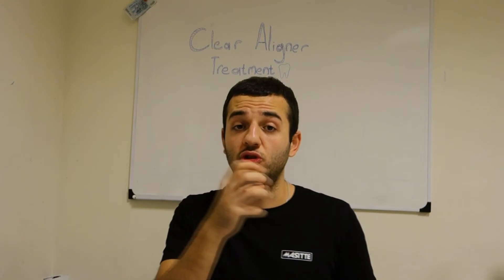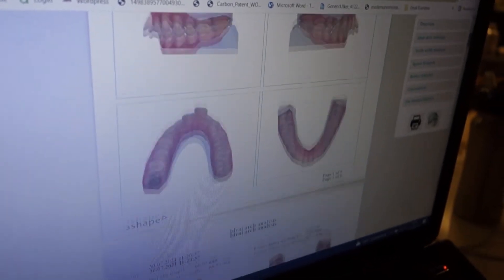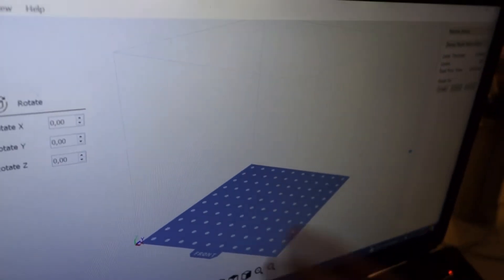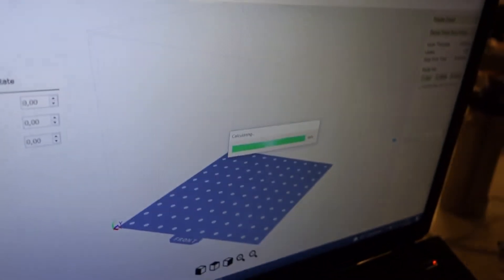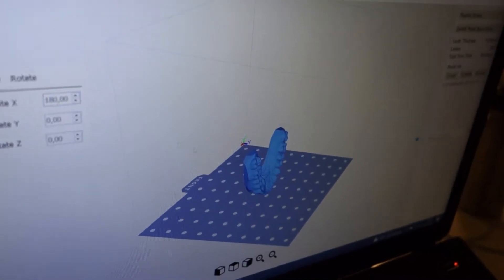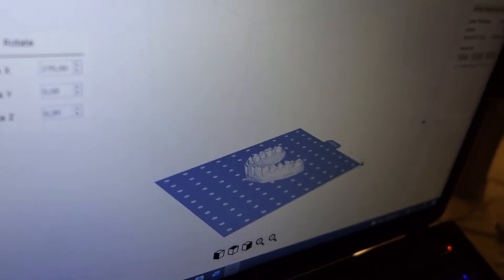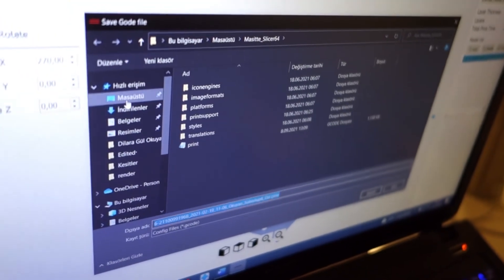These are the files we receive from our orthodontist — we have the scans and we take them into our slicer. This is essentially how our build plate looks, which is where the 3D print will be printed. We import it here, adjust it correctly, and depending on the job we place three or six models. Once the model is ready, we export it to a USB or SD card and take it to our 3D printer.